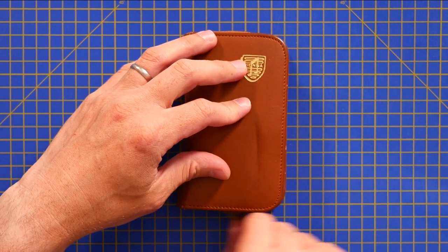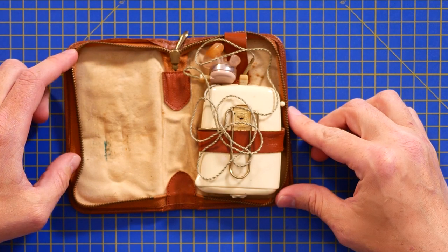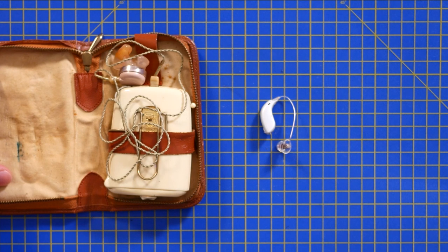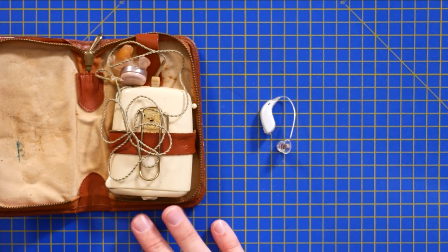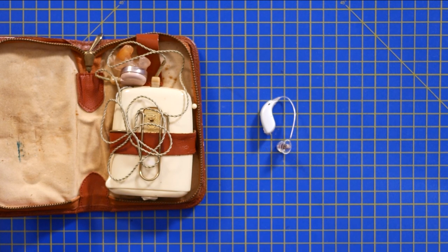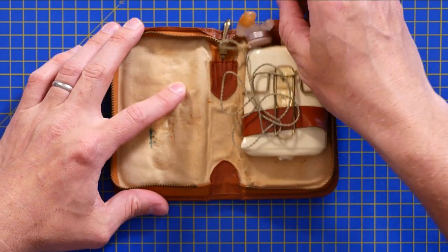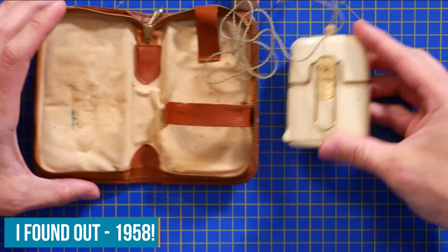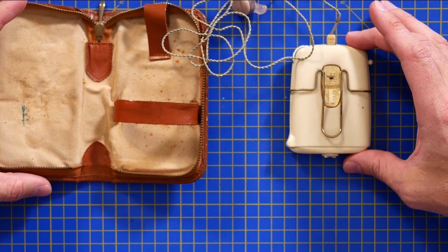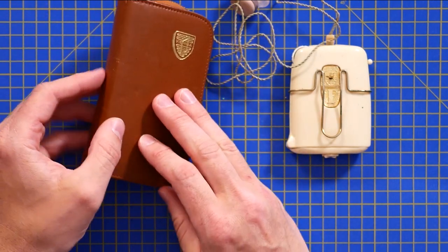For the sake of this video I have sourced a vintage hearing aid, and just for a bit of comparison we've also got a much more modern hearing aid to compare it to. We'll start with the older hearing aid and come back to the modern one later — I'm probably going to need to get the microscope out. I actually don't know how old this particular hearing aid is; I'm hoping we'll find some markers, but the style feels like late 70s or maybe early 80s, and it comes with its own little leather carry case.